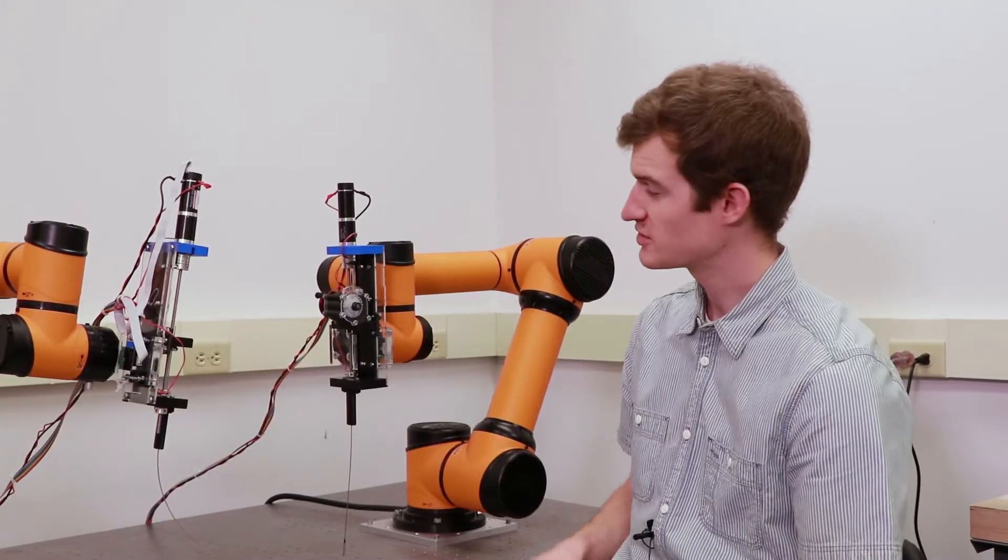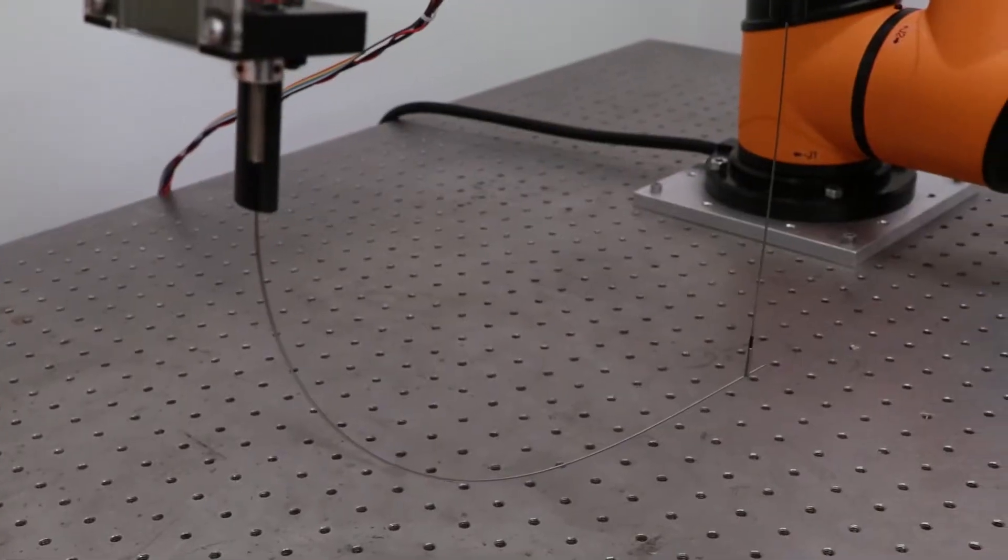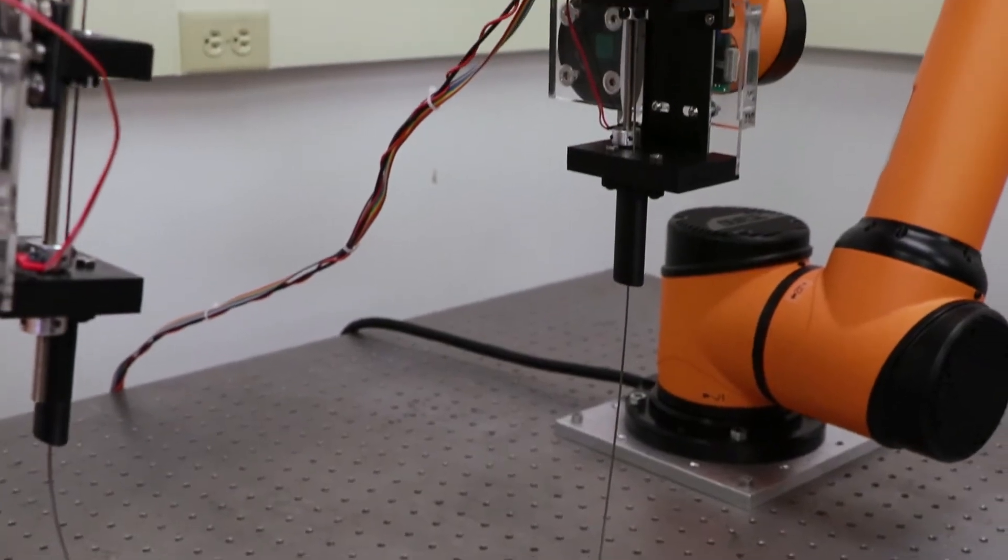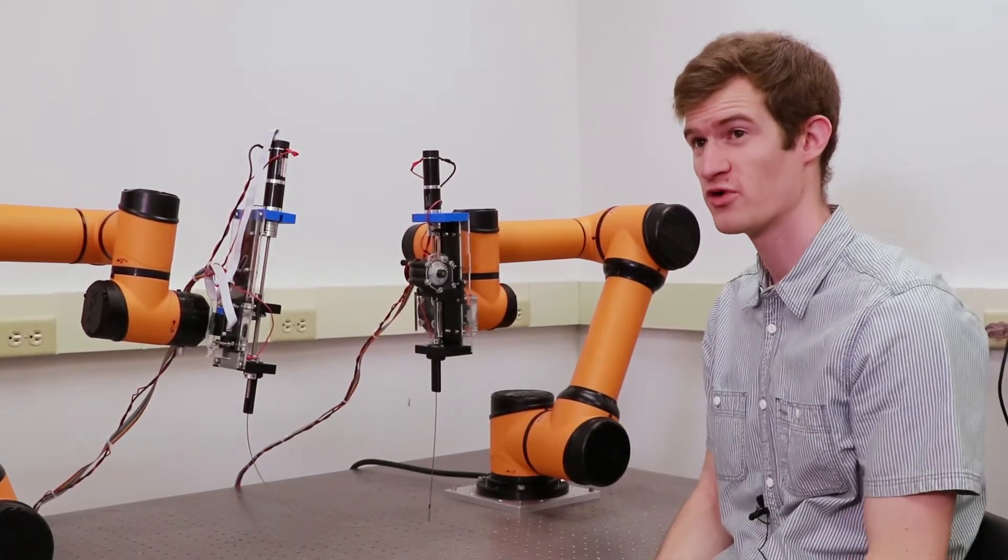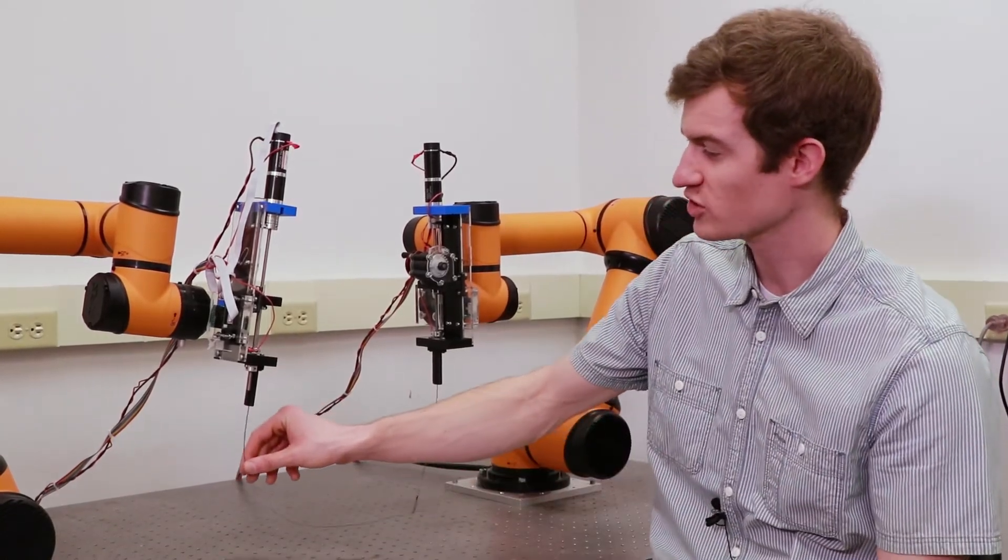This system combines multiple needles inside the body to create a flexible structure. We want to take what is normally an invasive procedure going through the ribs, which is really painful for patients, and shrink down the tools and make them really small.